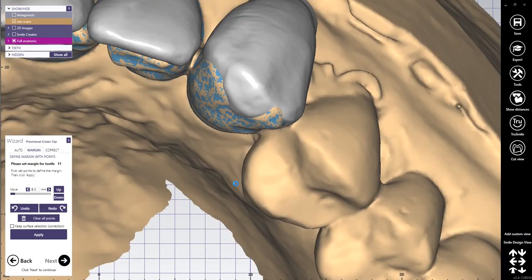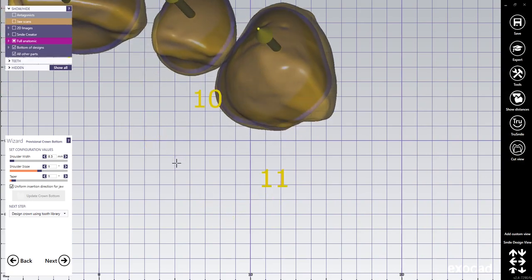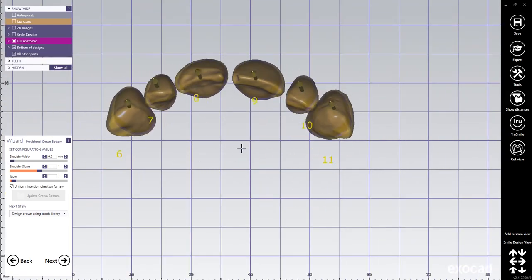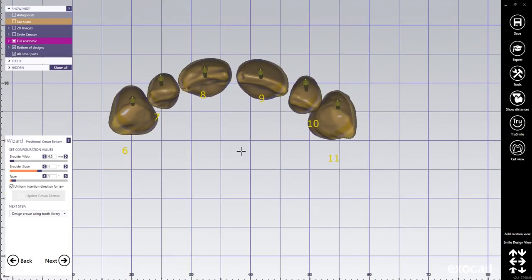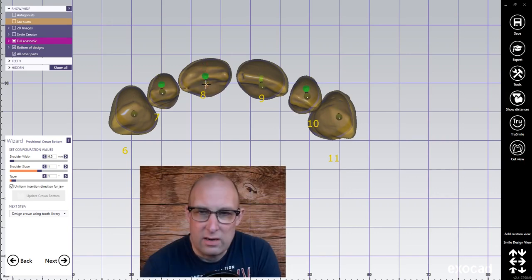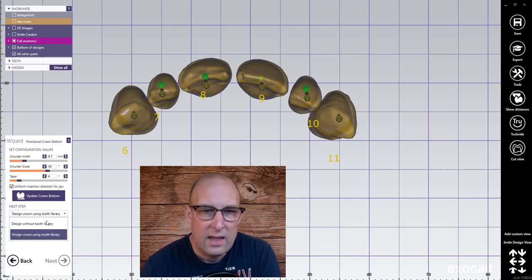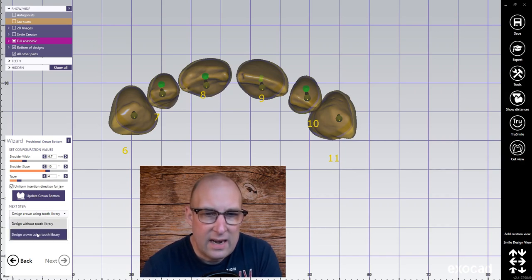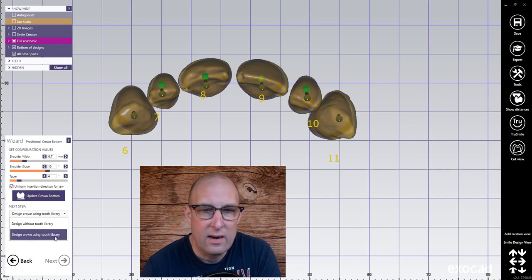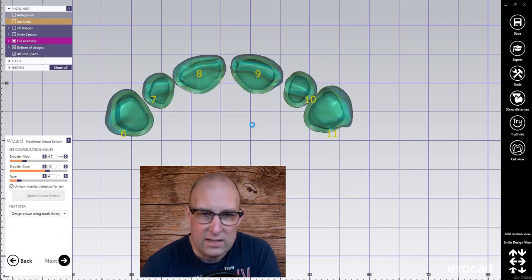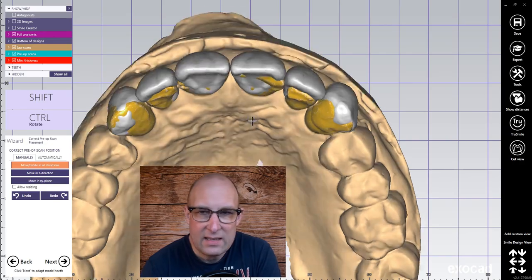Here I'm moving fast forward. Now we're going to set the insertion direction and the angulation. I'm going to make this to a long axis — I have 0.7, 10, and 4. Notice that I have it on 'using library tooth' — that's important. Click next.